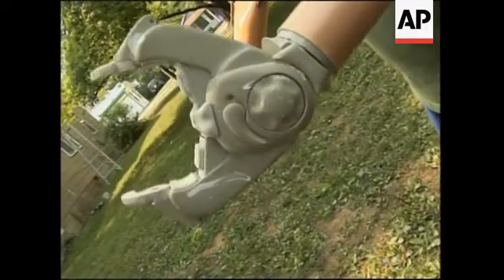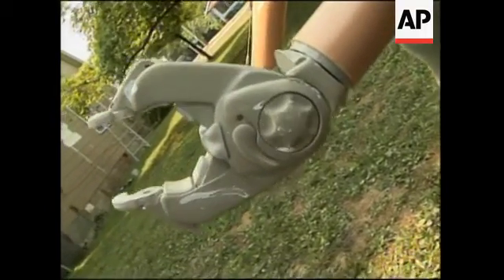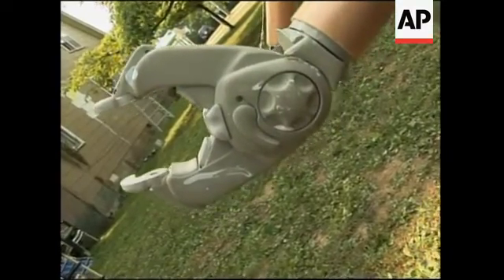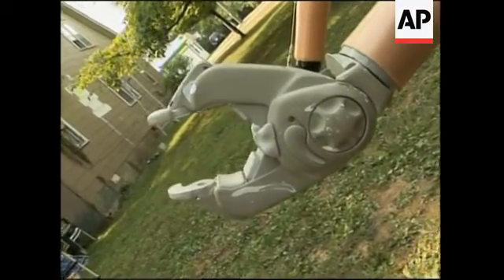Like I said, our soldiers that are coming home — if my being this way benefits them rather than being in the ground, then great. If it makes life better for them, won't that be great? From 2003, when I got that first arm, prosthetics will never be the same. It's amazing what they can do and what's on their agenda to do.